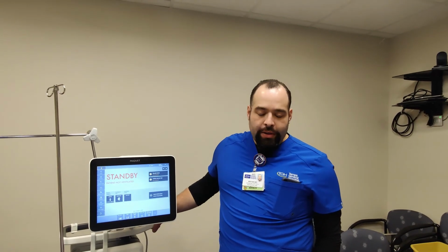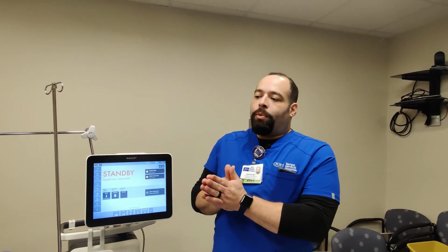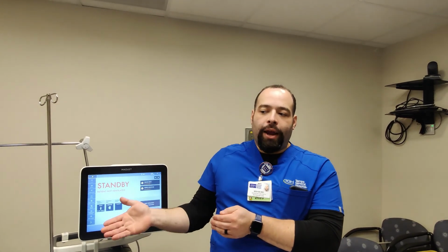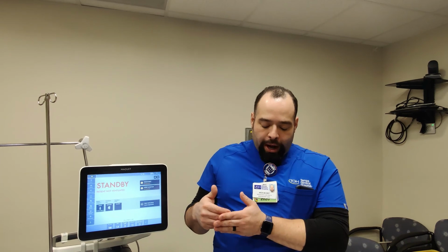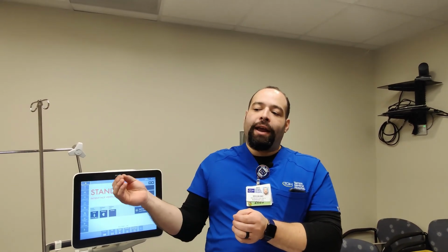All right, so let's discuss weaning a little bit more. When we're weaning, typically we'll put them on an SBT, a spontaneous breathing trial. The doctor will work with the critical care team, the RN and the RT, will work on weaning sedation, and the patient will then be put on the SBT by the RT. Now, one option for that is to put them on a T-piece, providing flow and oxygen and allowing the patient to spontaneously breathe on their own.